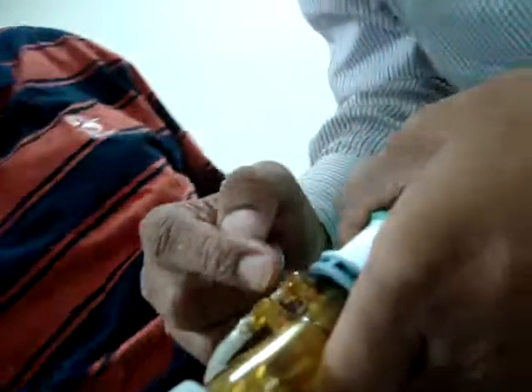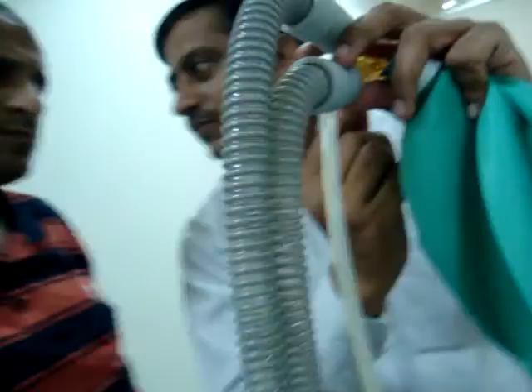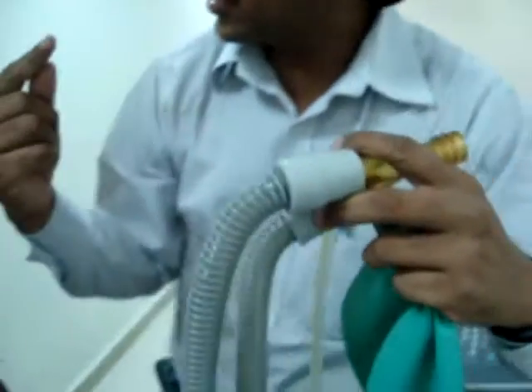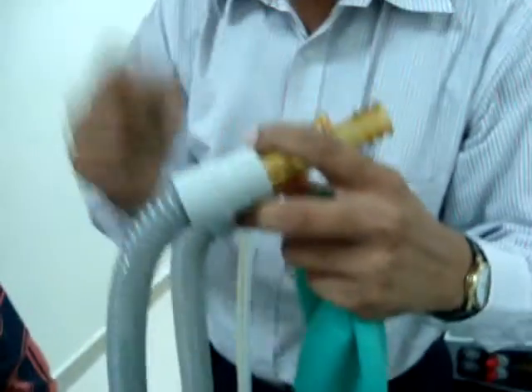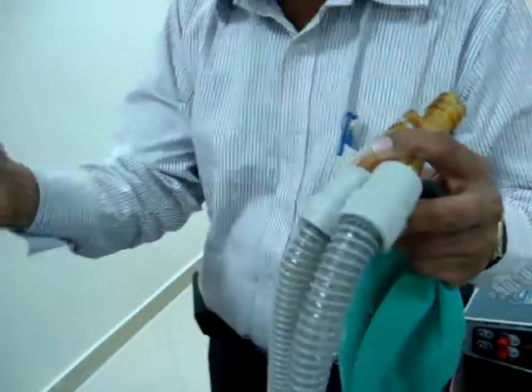This is a flow sensor. They made an arrangement, like a flow transducer. One before, one after. He is sending the air through an orifice. The differential between them is collected from here, the differential of the pressure, which gives the flow.